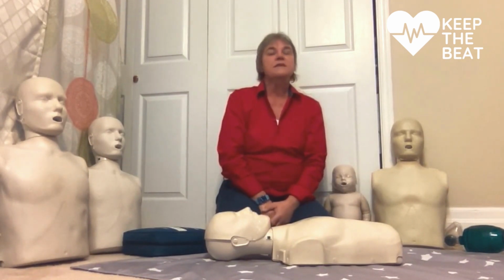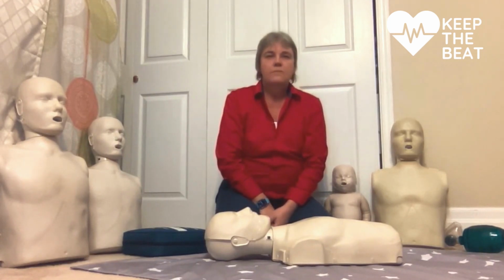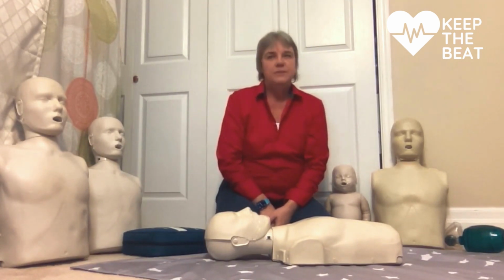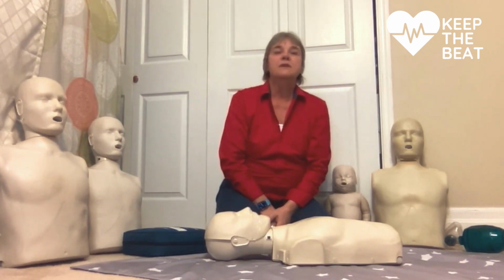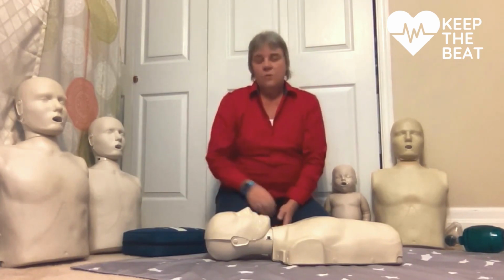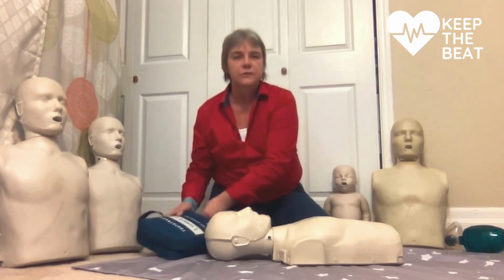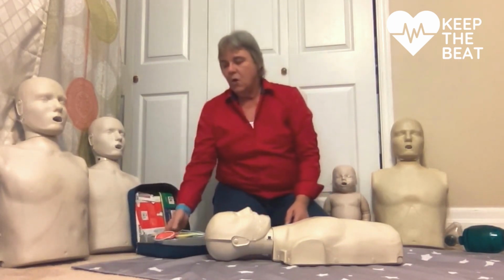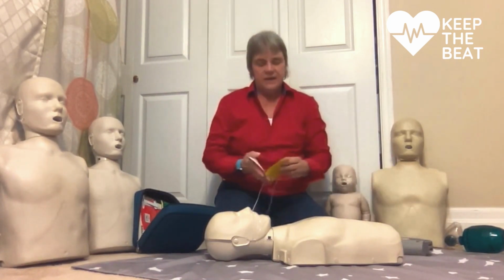After 5 cycles, I stop and reassess my patient utilizing CAB. Now, if I see an AED nearby, I'm going to run and grab it first and place that on my patient. I'm going to yell for help, and when somebody gets there, I'm going to tell them to go get me an AED and bring it back. Once they bring the AED back, I will have them doing CPR, the 30 compressions to 2 breaths, while I am putting the AED, or automatic external defibrillator, in place.